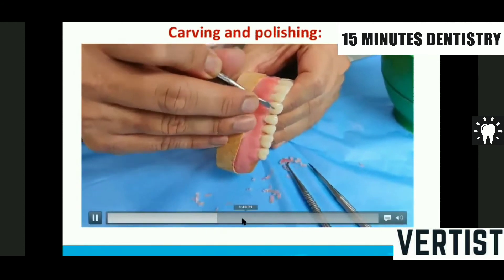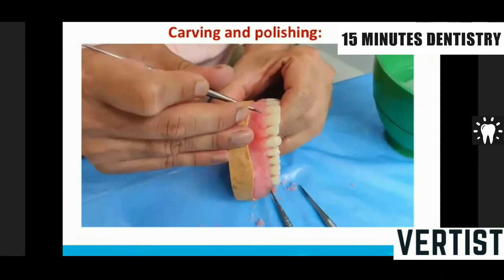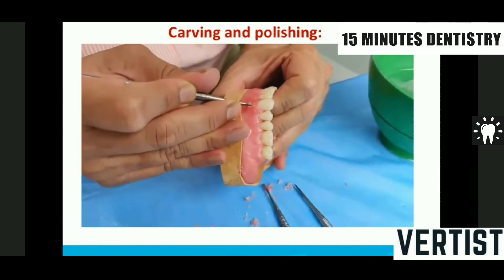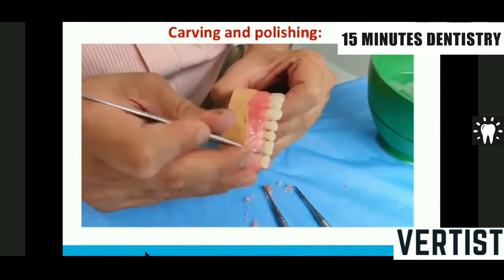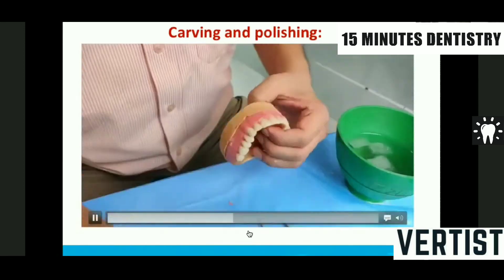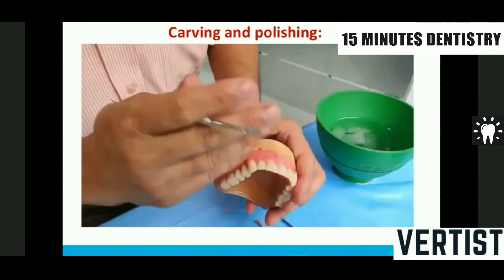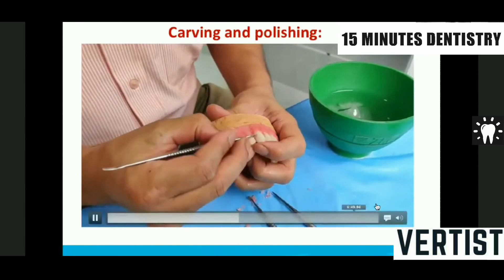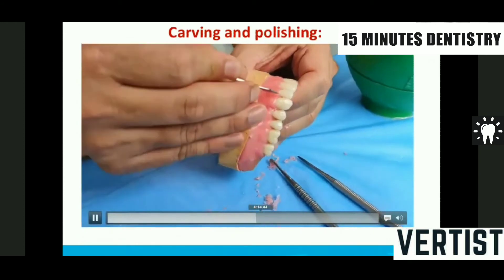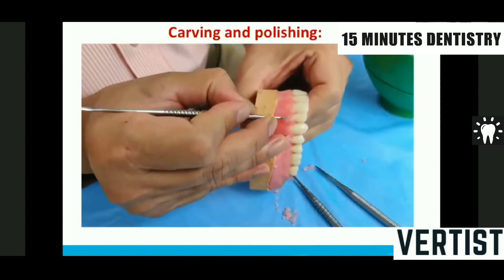After adjusting the interdental zone, I start carving the roots. All the curvatures of the roots are distally tapered, so in the same manner I draw a line on the wax rim with a distal curvature. I then dip it in ice-cold water so it hardens quickly and the position of the teeth is not changed. Then I proceed with root carving, making the roots slightly prominent.